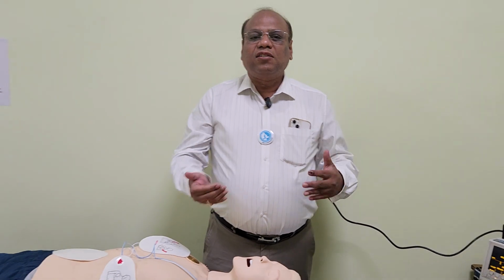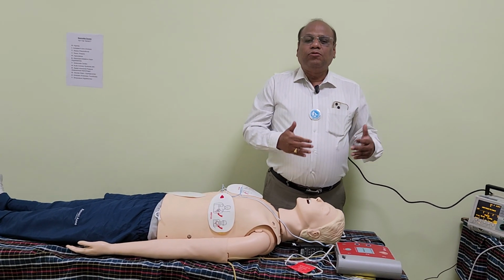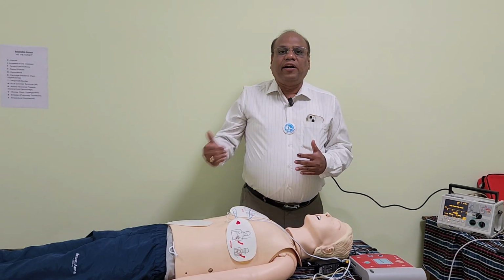The next thing the student should be asked is, is it the end of the scenario or do you want to check something else? Then the student should be re-emphasized that the question is not only changing the pacing spike to electrical capture, the patient should be clinically well, for which the patient has come to us and we started transcutaneous pacing. How are we going to do that? Then the student should answer that I will check the vitals.